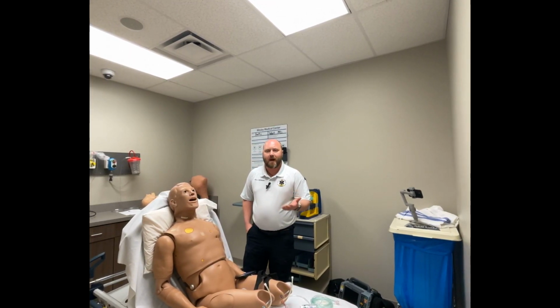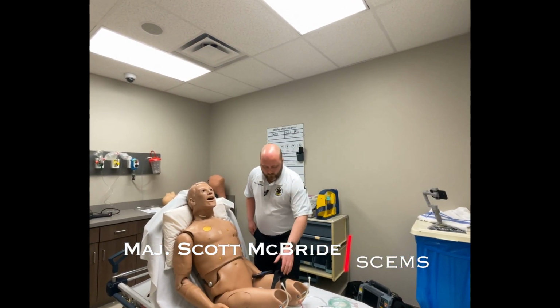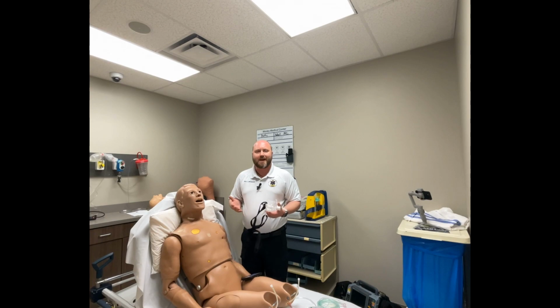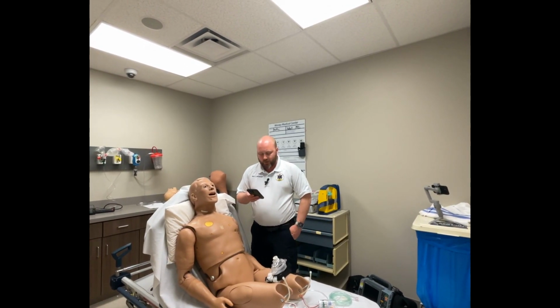All right, so next skill is CPAP. This is new this year for all EMTs to be tested on. What we're going to do is have the standard traditional application of the CPAP, but the one thing I want you guys to focus on is your indications and contraindications. Okay, so just to read them off so you guys remember them.